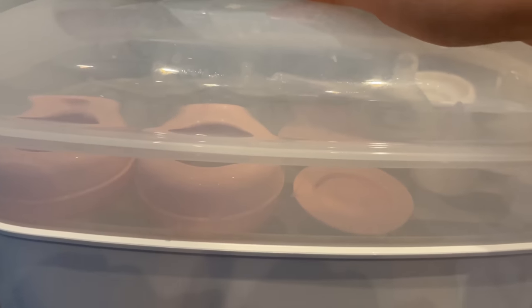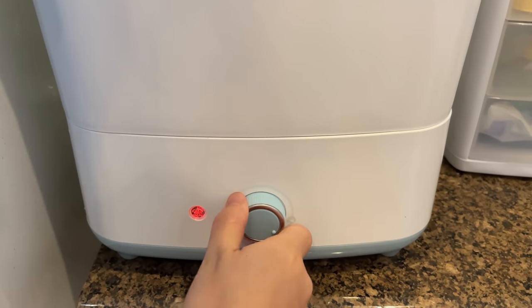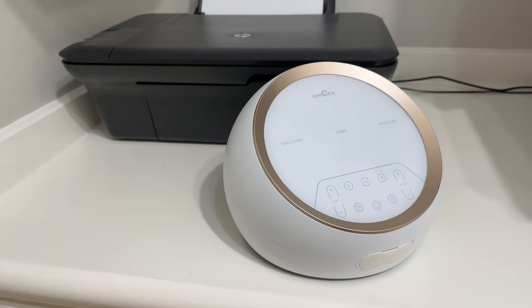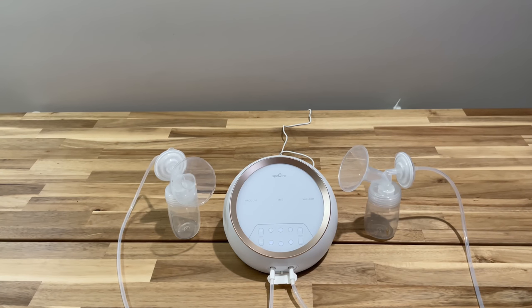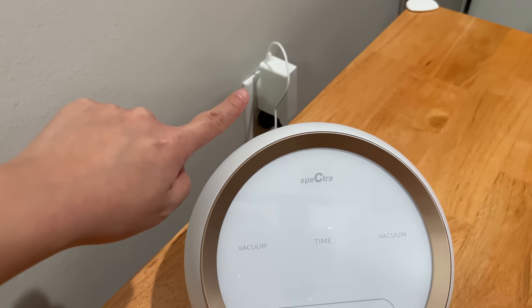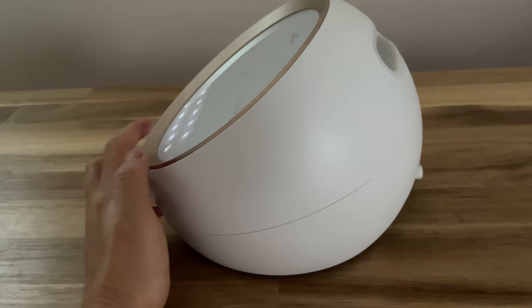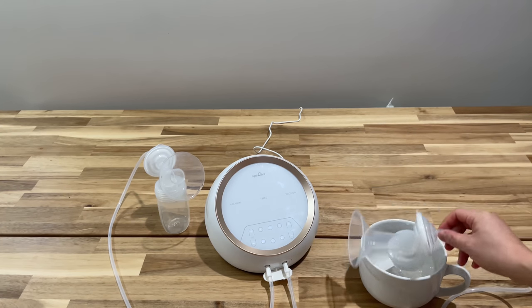Now for the pros and cons of this pump. Overall I think this is a great pump — it has very good power, the suction is great, equivalent to hospital grade. I had used the Medela Symphony in the past and this still pulled quite a bit of milk each session. I love that it can control each side independently, especially since I have one slacker boob, and that it remembers the previous settings. The downside is that it is more expensive, especially since there's not a lot of added benefit — but if insurance covers it, that's great. I would not recommend this pump if you go to work, because it's not very portable. It's a great pump to stay at home or work from home, as it needs to be plugged into the wall and there's no space to hold the bottles — so be careful not to tilt them or they could spill. One tip: after pumping, place the bottles in a mug. Even if they get tilted, they won't spill.